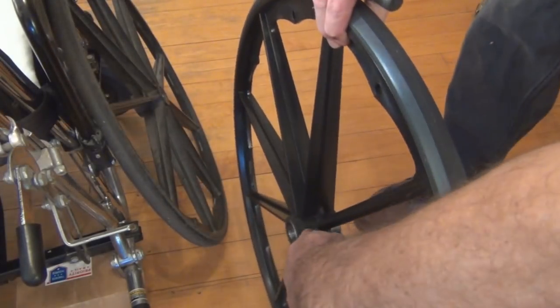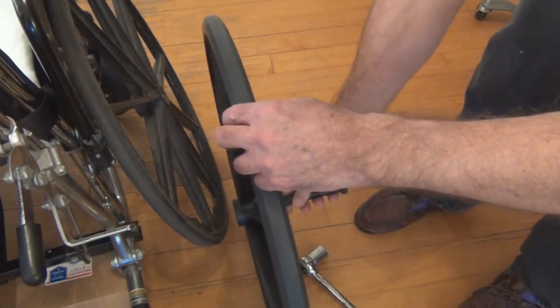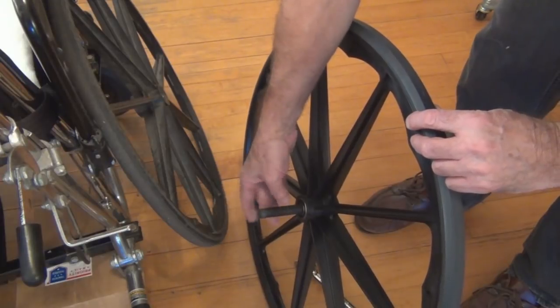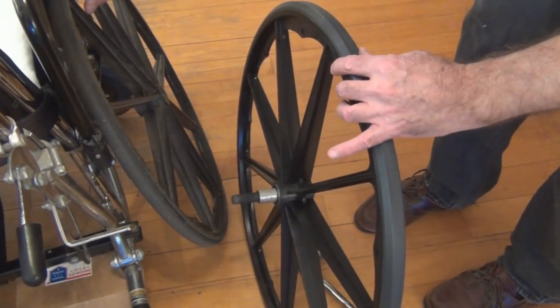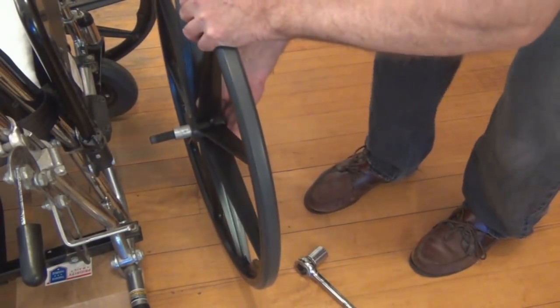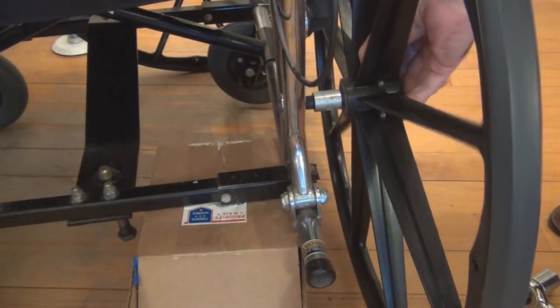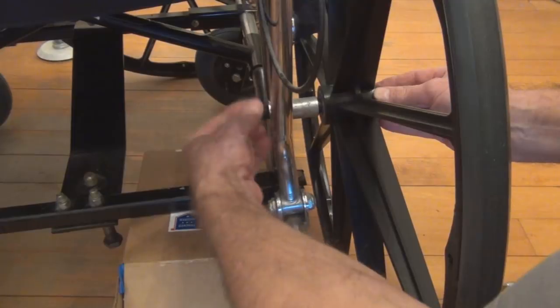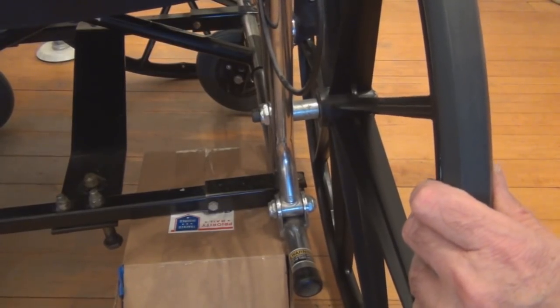Let me double-check the facing is correct — on the other side that's correct. If you look, there's a flange or protrusion more on this side, which puts the facing outside. There's no grease on this — the bearing turns, which is what turns. That looks like this is going to be an easy change. Wow, look at how shiny! Now this is just going to fit in — the box is working out — just push that in.